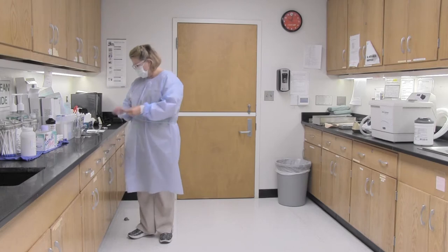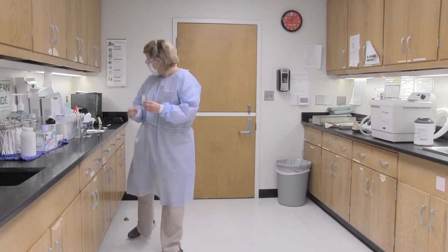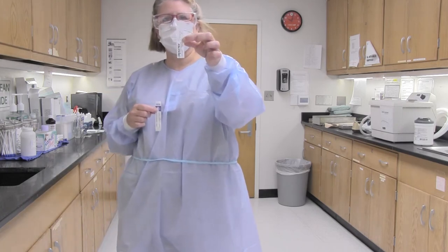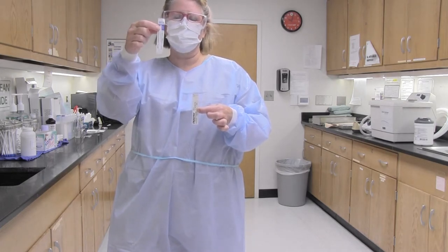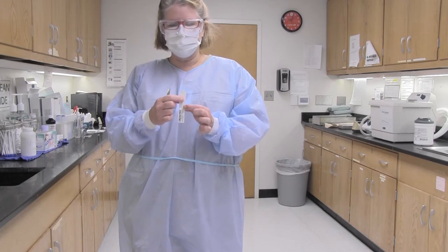The chemical strip will be placed in each cassette of critical cloth-bagged instruments. It looks different from the integrator. The chemical strip goes into each cassette. If you'll notice, I've put the autoclave number A1, the date, and my initials on it.